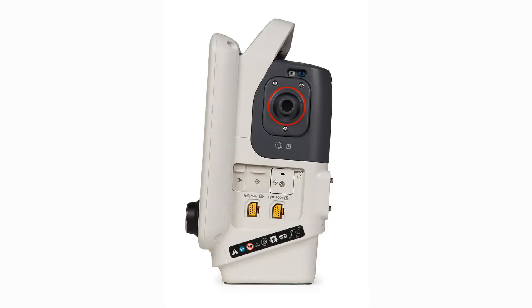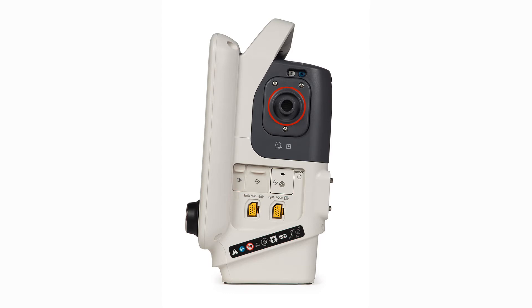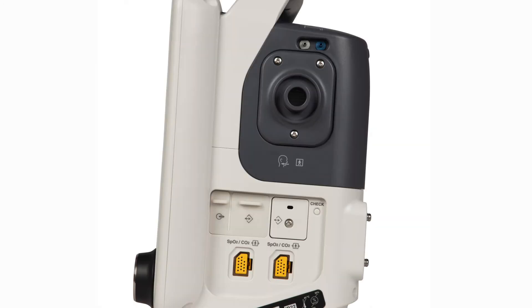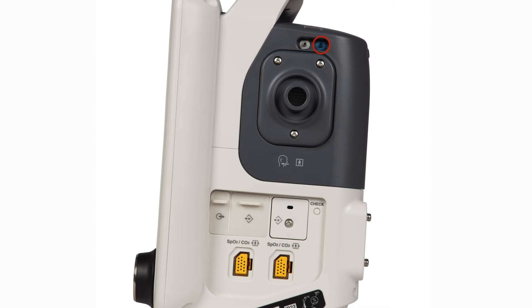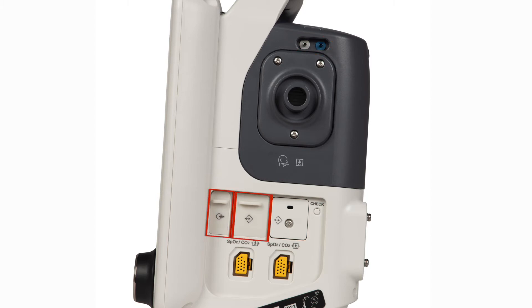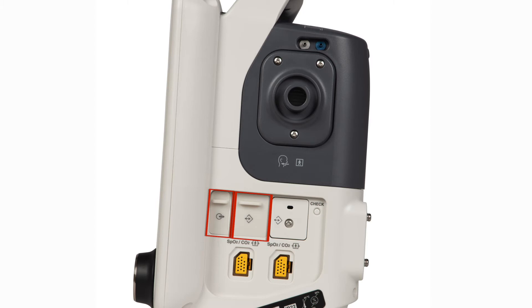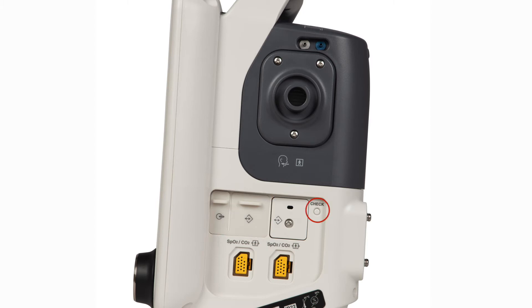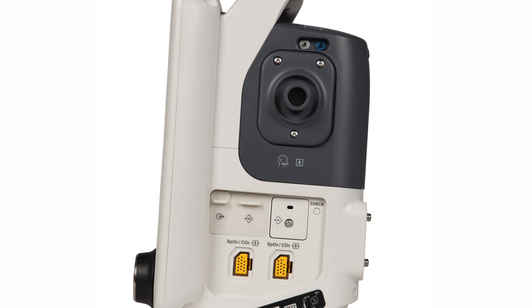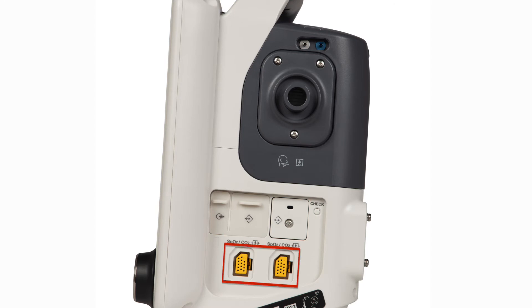On the right side of the ventilator is the inspiratory gas outlet port. Air going to the patient passes through a HEPA filter located directly behind this port. There are tubing connections for measuring proximal pressure or for connecting the optional proximal flow sensor. A USB port and SD card slots are used for downloading settings, saving data, and updating software. A check button provides access to the system configuration and technical screens when pressed and held during power-up.